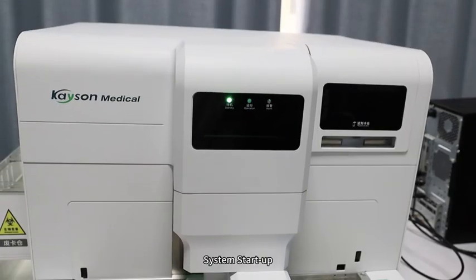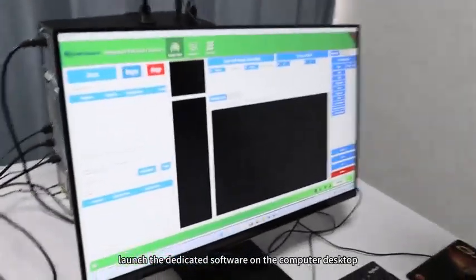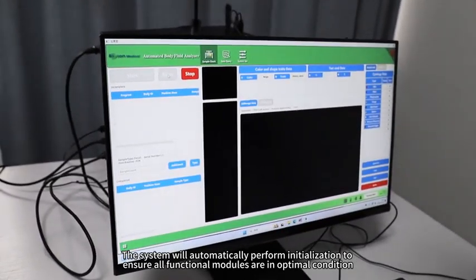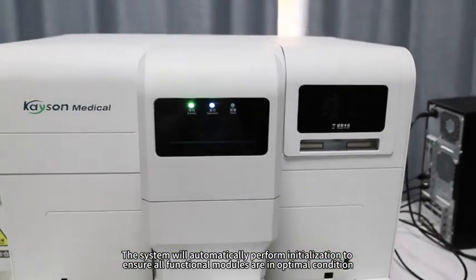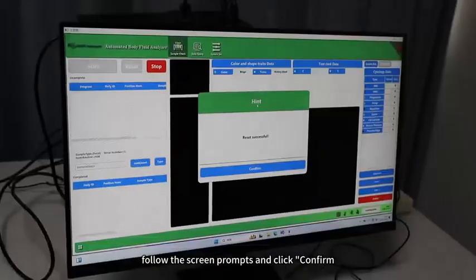System Startup: Turn on the power supply of the device, launch the dedicated software on the computer desktop, and click the Reset button. The system will automatically perform initialization to ensure all functional modules are in optimal condition. After initialization is complete, follow the screen prompts and click Confirm.